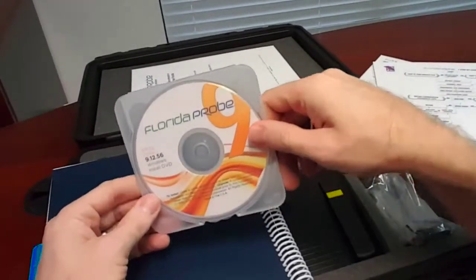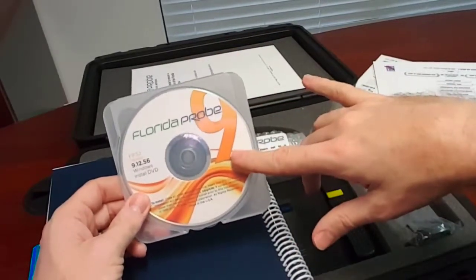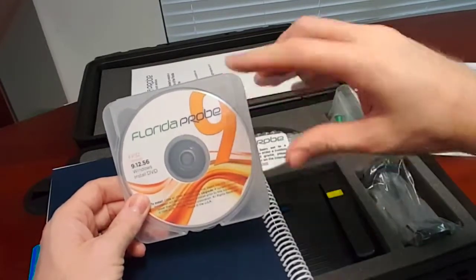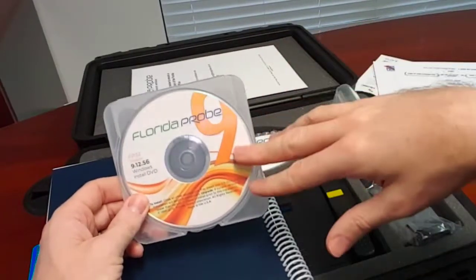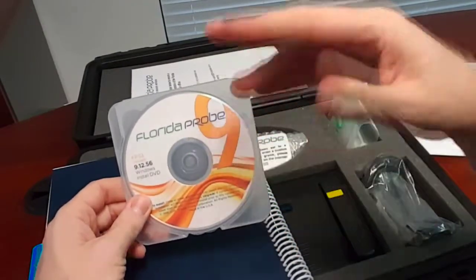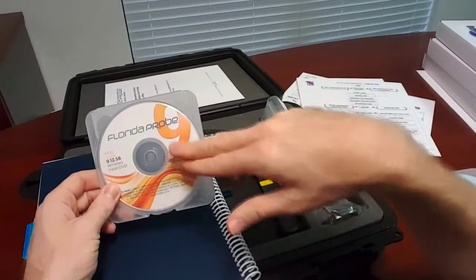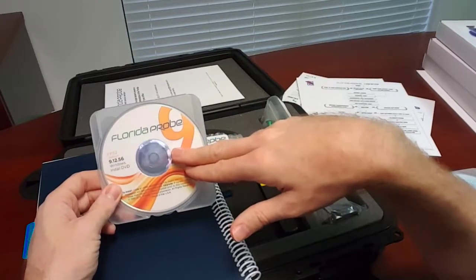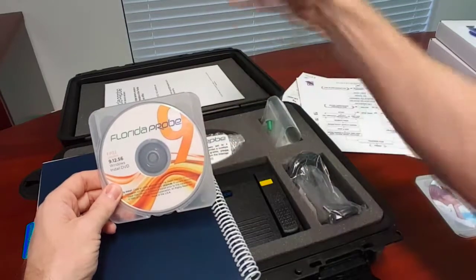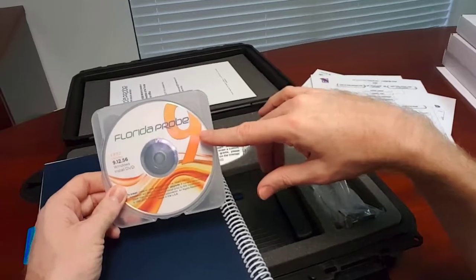Typically they're installing it on a server computer first — any computer in your office can act as the server. It installs a MySQL server that will support a maximum of about 400 simultaneous workstations. The average office has about 10 to 15 workstations. There's no cost to install it on one computer versus 50, so we'll install it on as many computers as you ever want to view or print charts on. Each additional workstation has a full copy of the software so it doesn't tax your network.